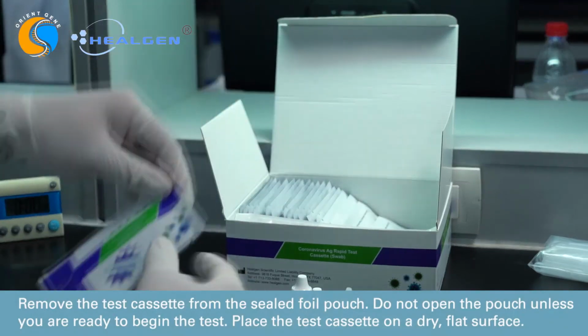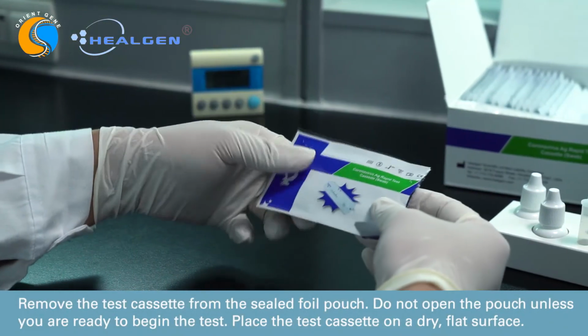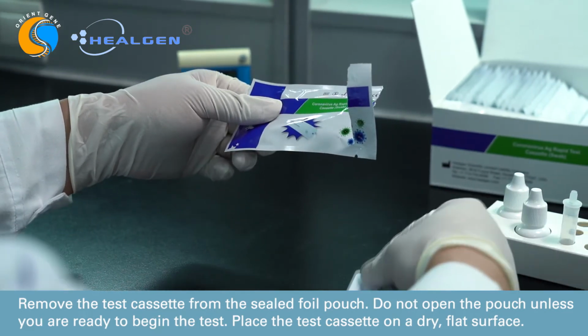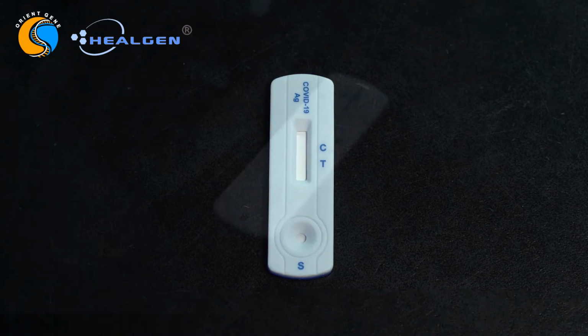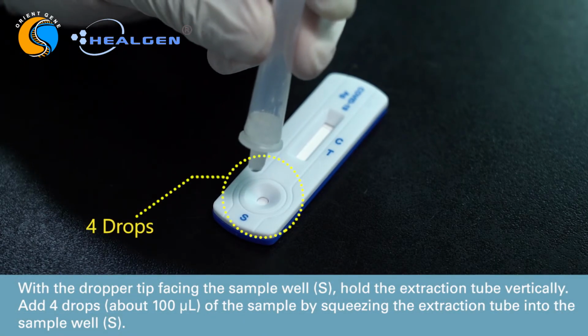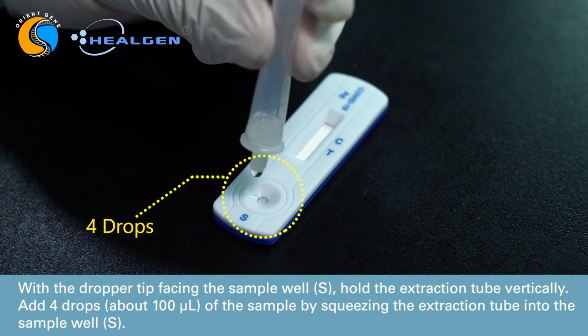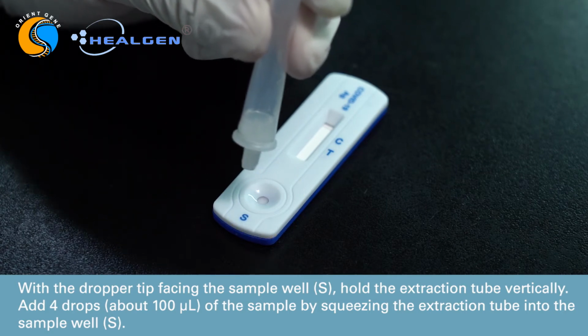Remove the test cassette from the sealed foil pouch. Do not open the pouch unless you are ready to begin the test. Place the test cassette on a dry, flat surface. With the dropper tip facing the sample well, labeled S, hold the extraction tube vertically. Add 4 drops, about 100 microliters, of the sample by squeezing the extraction tube into the sample well.